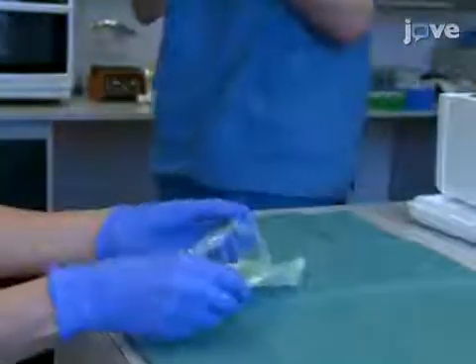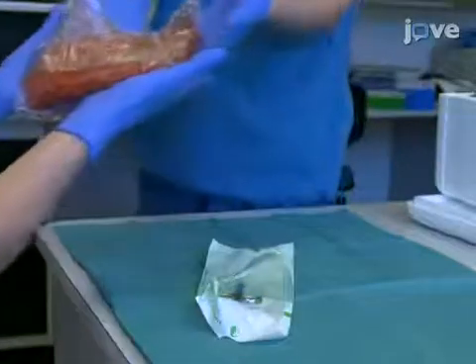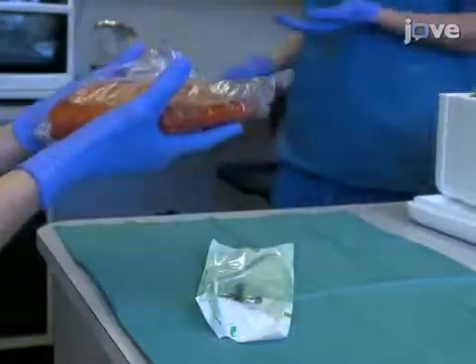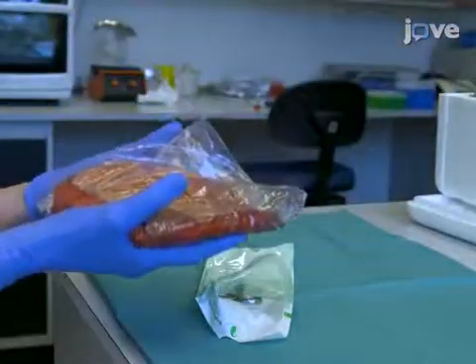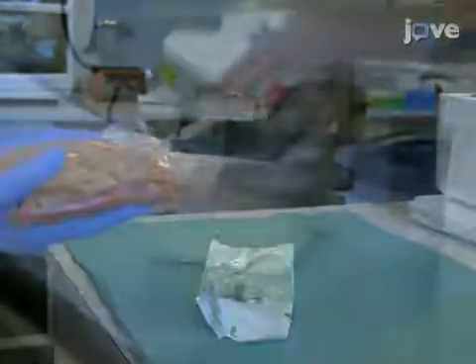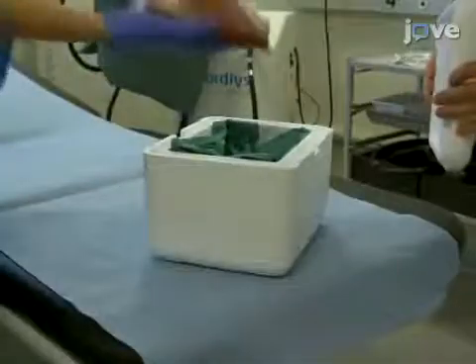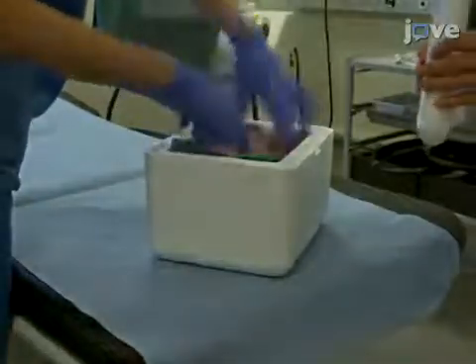Collect 10cm x 15cm skin samples from healthy adult volunteers undergoing plastic surgery. Keep the skin cool by transporting the skin samples in a styrofoam box containing ice.